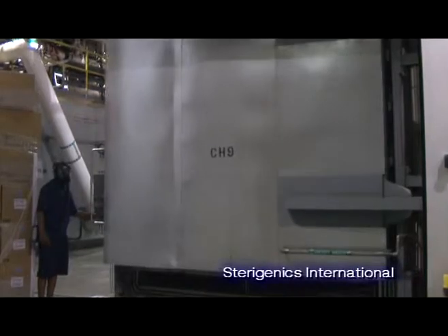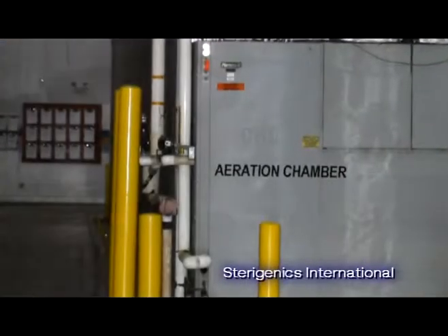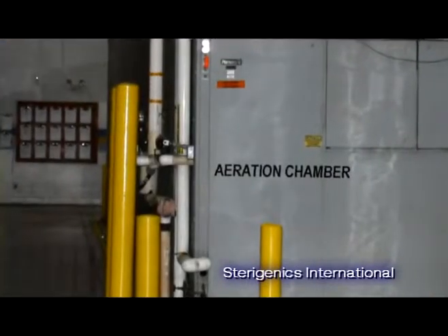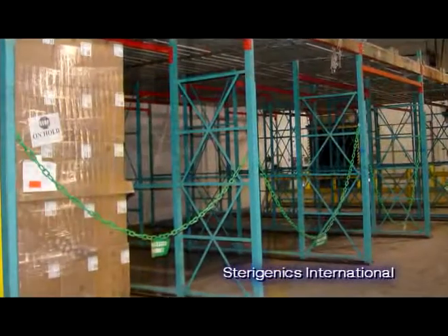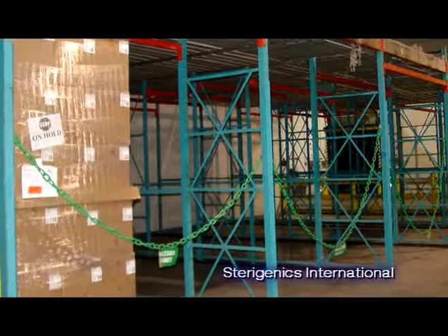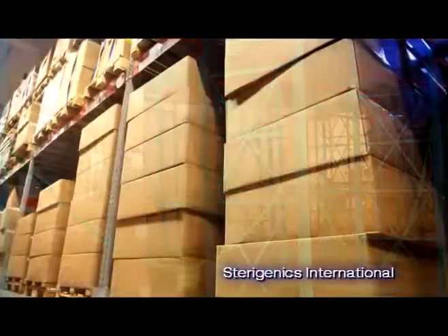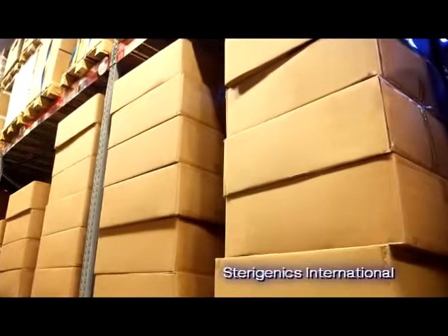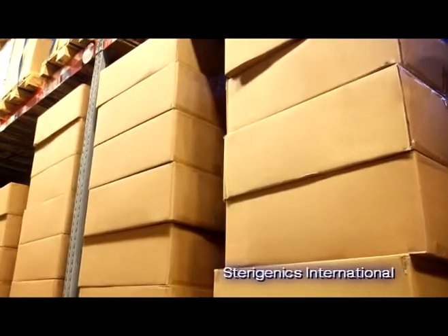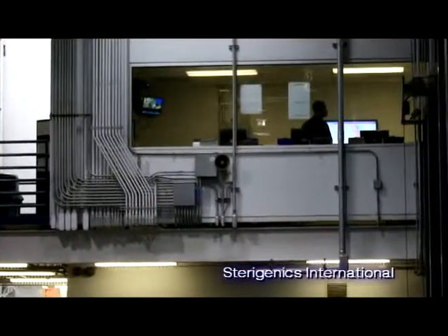Once all the EO gas has been safely removed from the chamber, the treated product is moved to an aeration room or aeration chamber. The aeration chamber is designed to be a high temperature holding area in which the air is actively circulated and replaced a number of times each hour. This facilitates the removal of any residual EO gas that may have remained on the product. Product will remain in aeration anywhere from one to seven days.